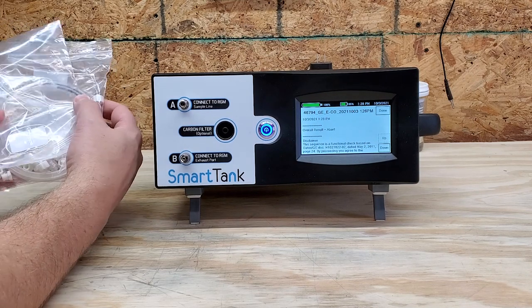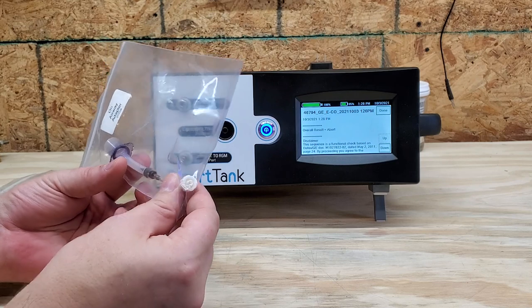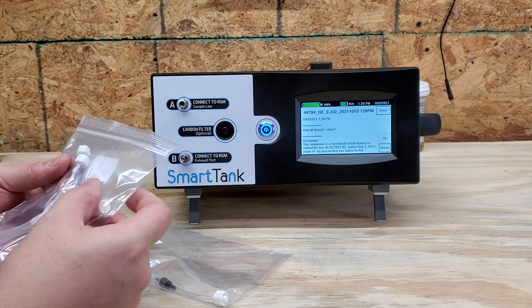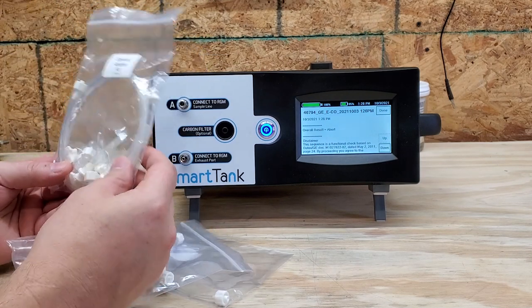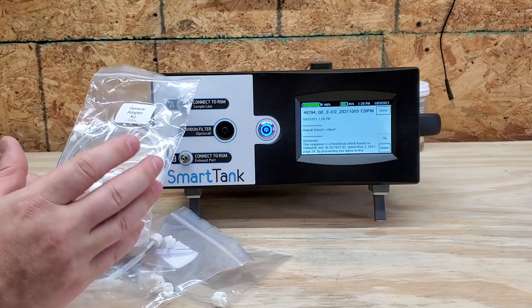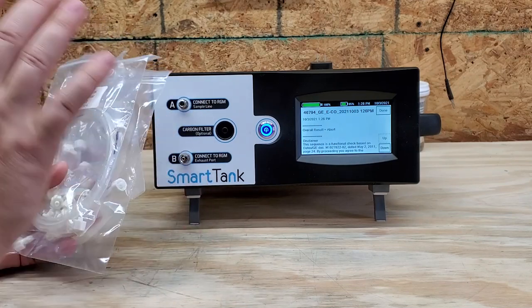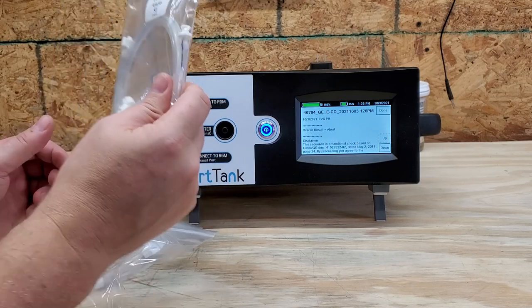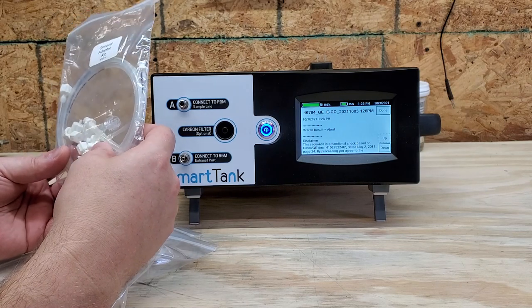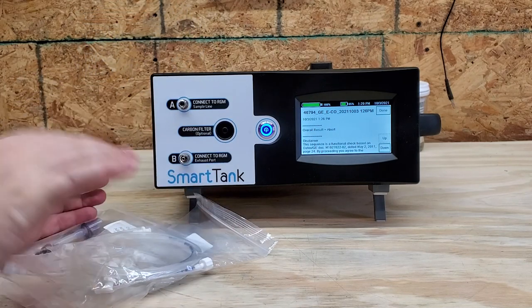Let's go over some of the stuff that is in the box. I have an adapter — it's an on-airway adapter — and a Y adapter with some other luer lock fittings, so I can adapt to all sorts of different modules, and a general adapter kit. Now guys, if you get this kit I highly suggest you have another container for all of this — maybe a zip pouch — because biomeds lose stuff and that's our biggest fallback. This is a very inclusive kit.